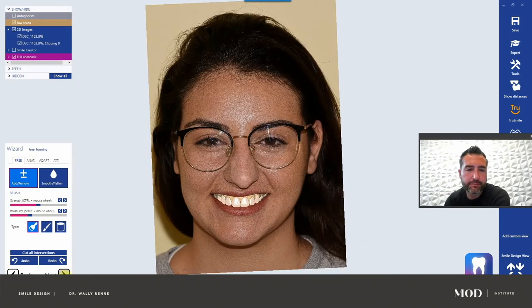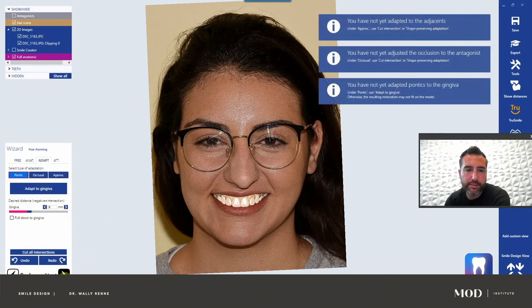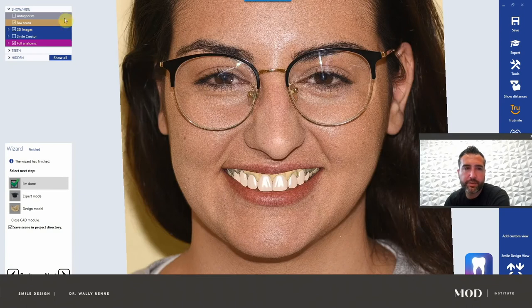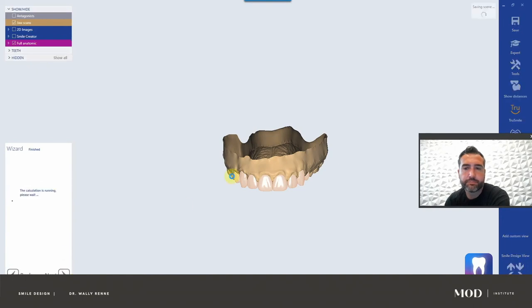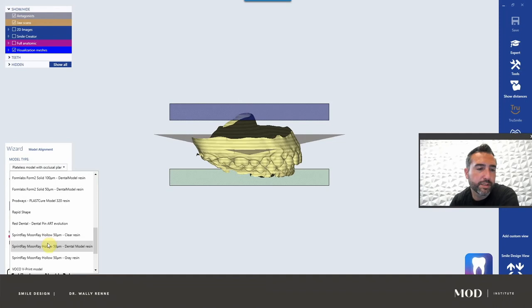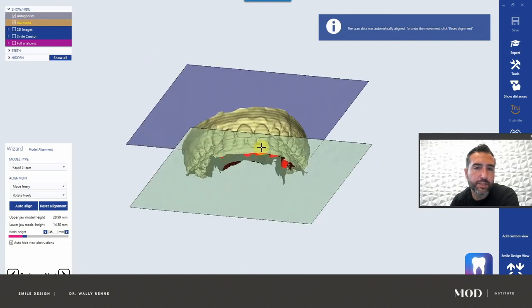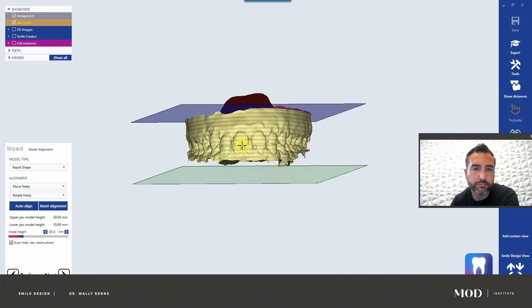How do we get this printable? It says 'not adapted' — that is fine; I understand that I am not going to design the gingiva. So now how do we get this printed? I'm going to go ahead and go to design model, and it's going to walk me through the model design. Model type doesn't really matter. I've used this rapid shape in the past — what you can do is if you want to cut that palate away, just change the model height and move the model. Cut it like this. No dies, let it run again.